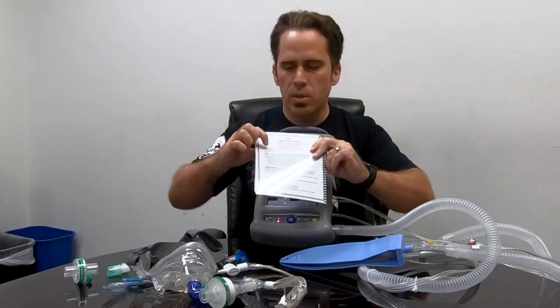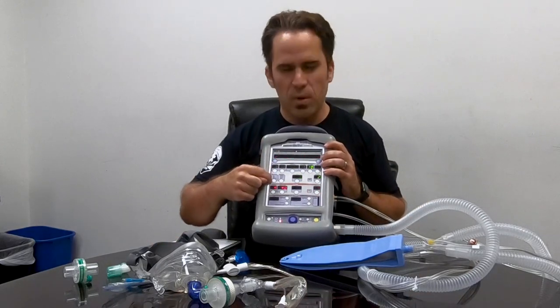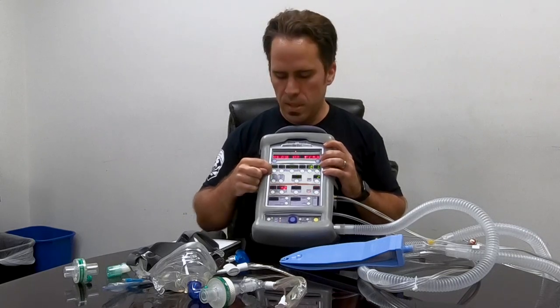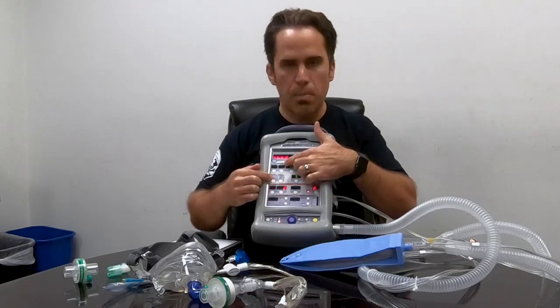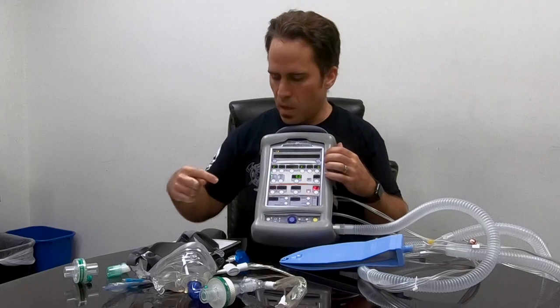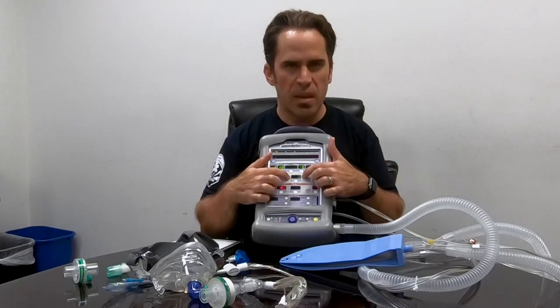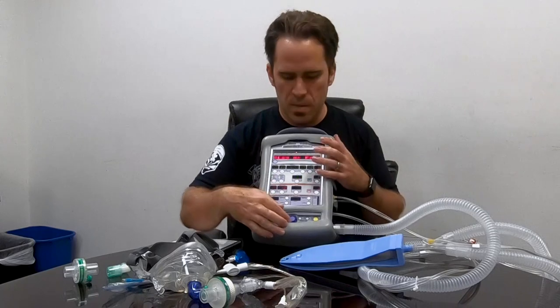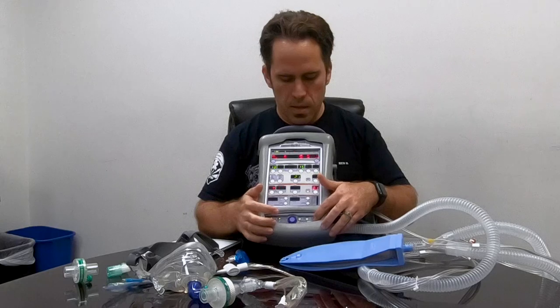This skips all the setup if you did it in the morning. I just do my double-check and make one change: I switch the breath mode from CPAP plus pressure support to Assist Control. This makes it better and easier — a pressure breath pops on right there. It already popped me into pressure mode and kept me at 50% O2 with all my alarms in place.